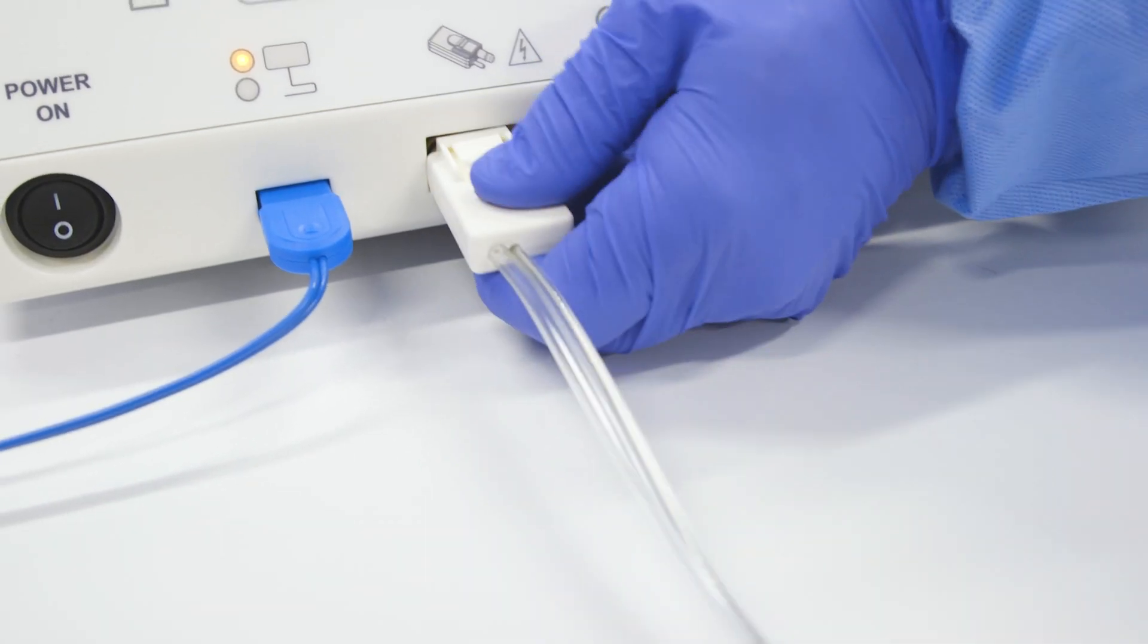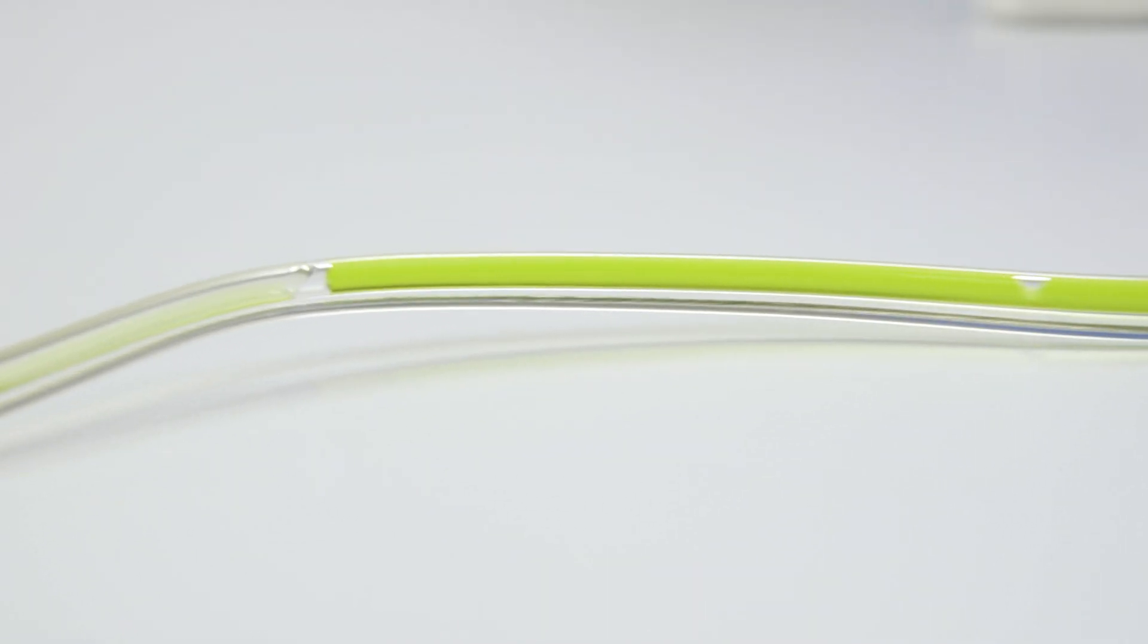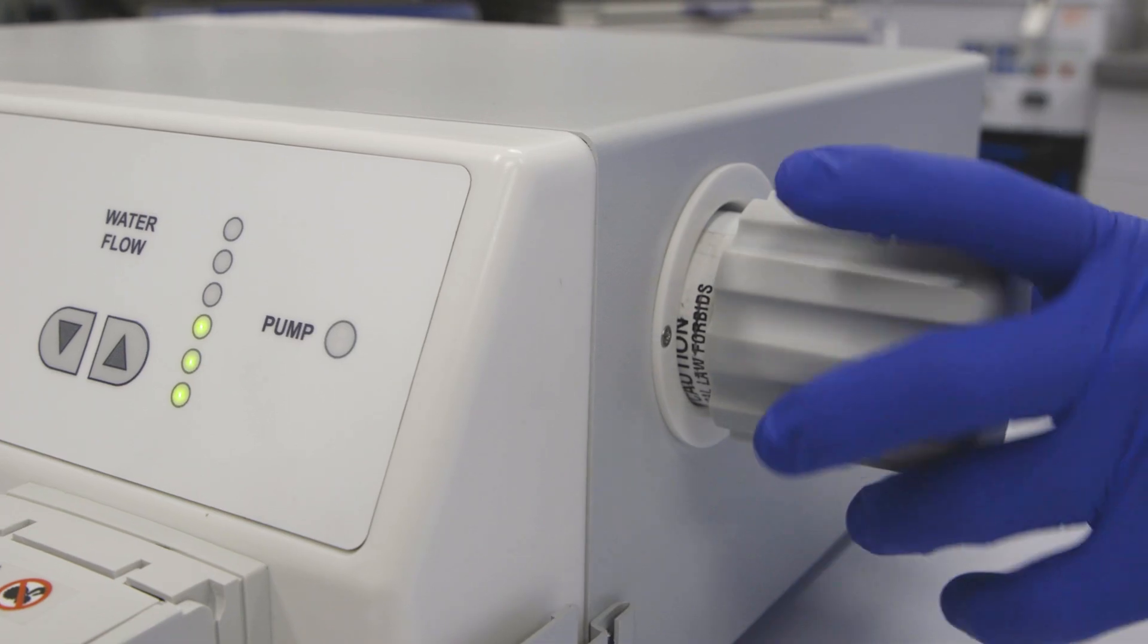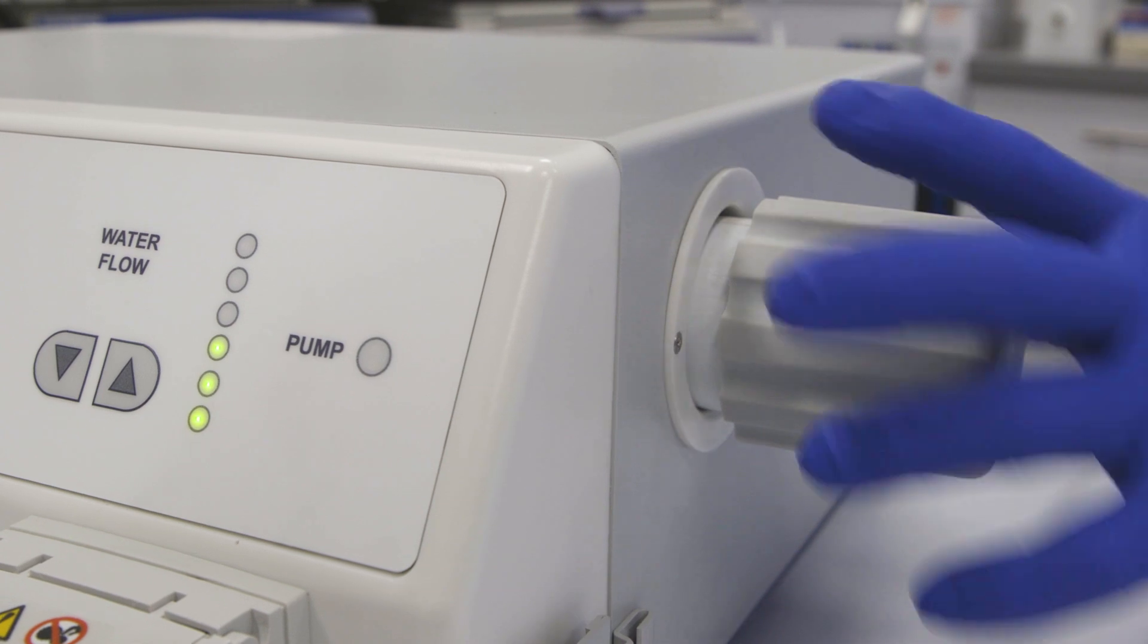If disconnected while the argon probe remains in the patient, back pressure will travel through the probe to the ArcConnect. In addition, avoid leaving the argon coagulation probe and ArcConnect connected to the ArcConnect receptacle when replacing an empty argon gas bottle.